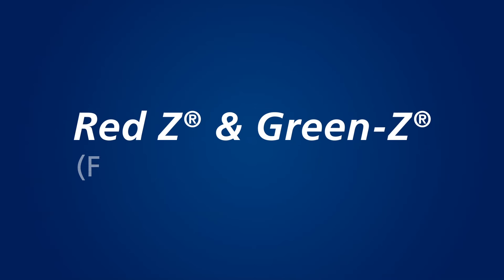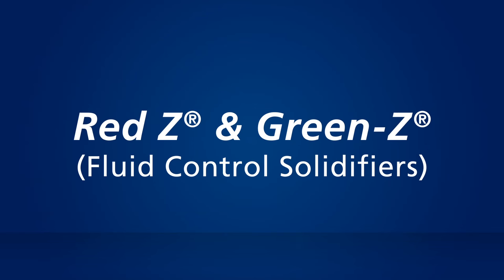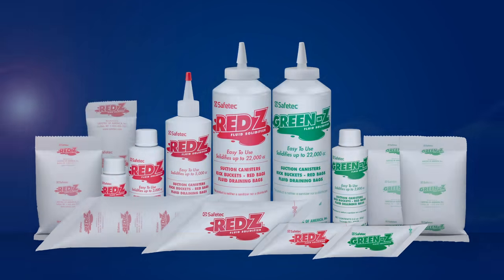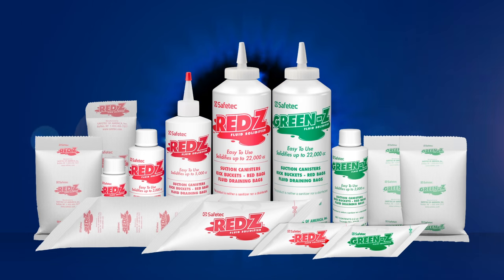To help improve operating room turnover and worker safety when handling or transporting liquid medical waste, use Safetec's fluid control solidifiers, Red Z and Green Z.